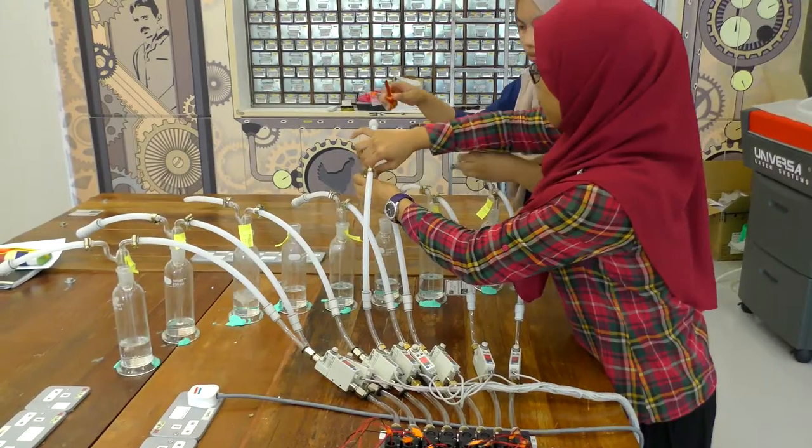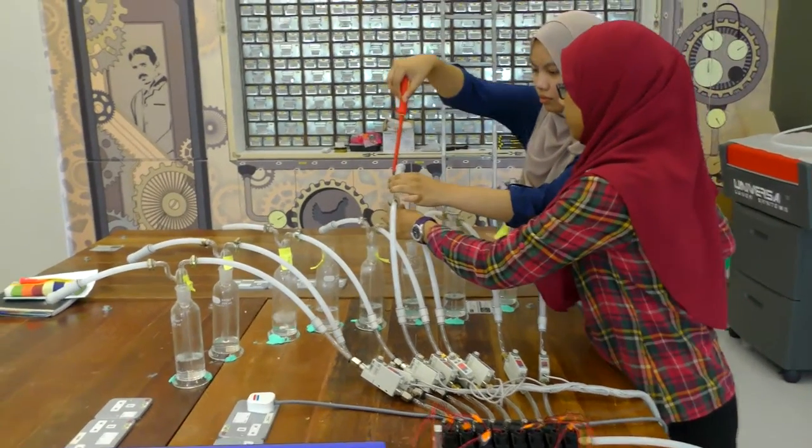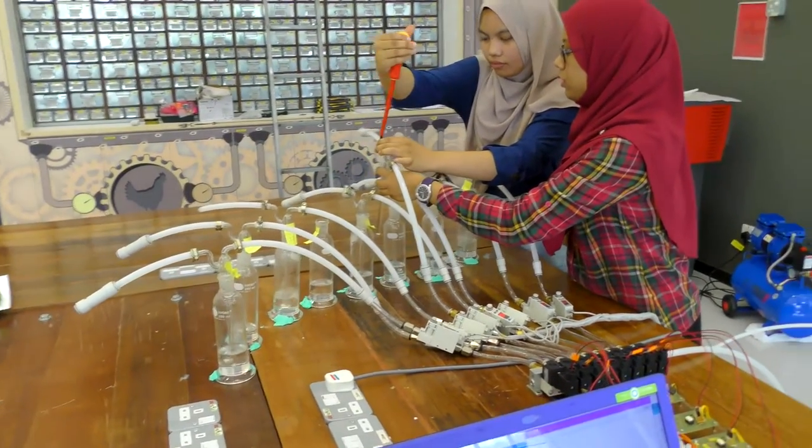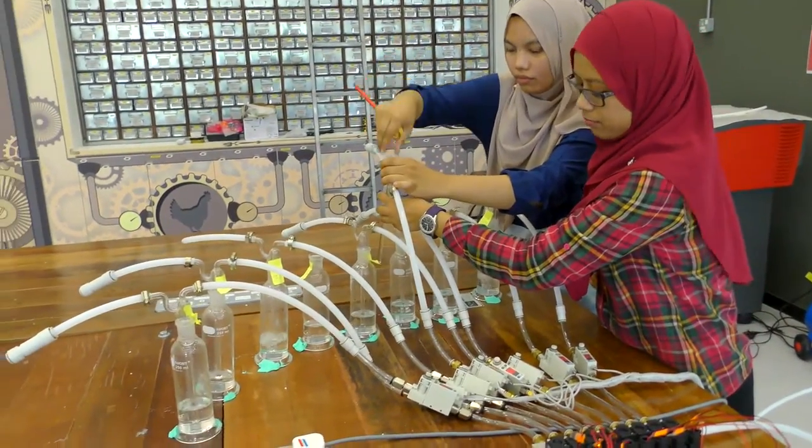We use eight glass bottles. Inside the glass bottles, we put seven different liquids that have different smells. And another one bottle is putting pure air to continuously flow to the subject's nose.